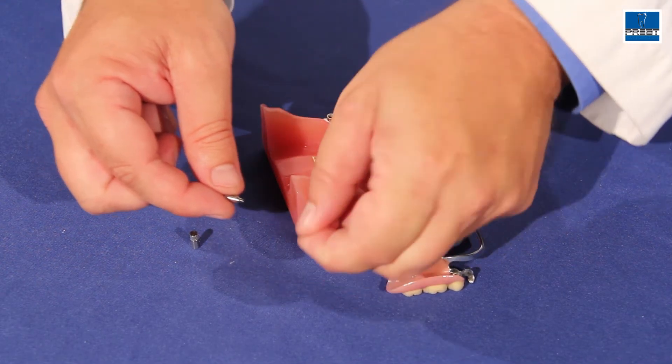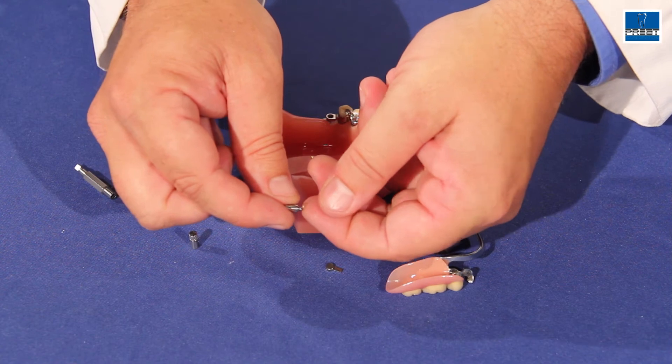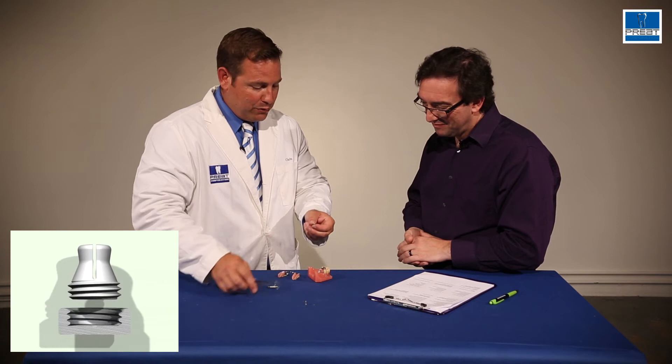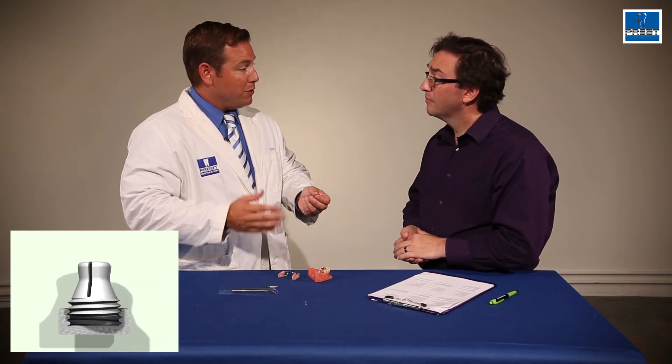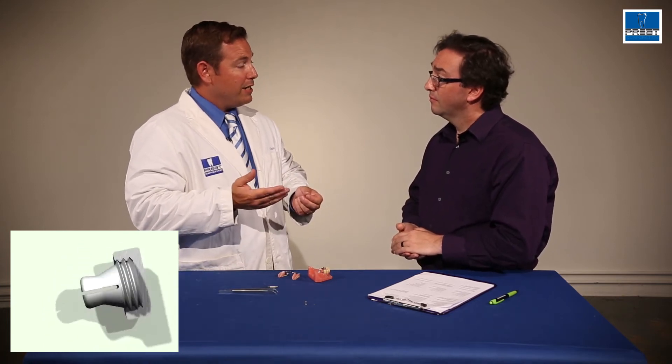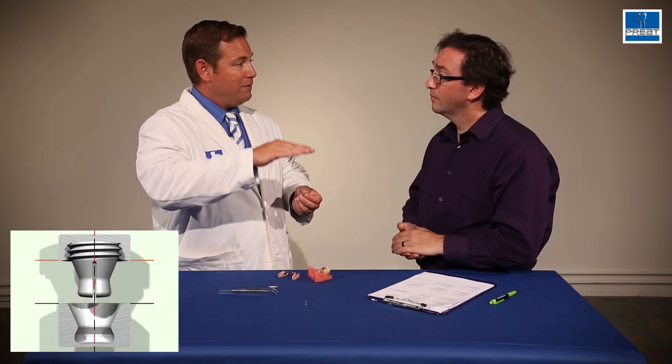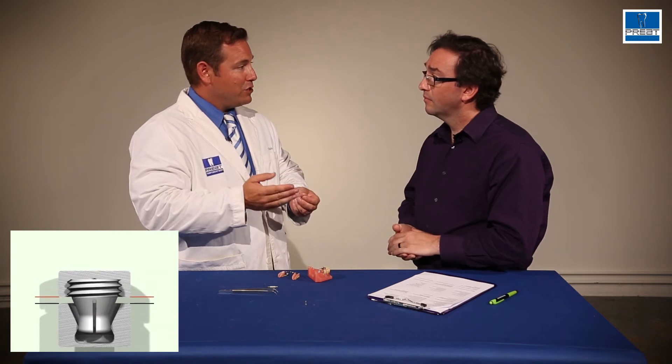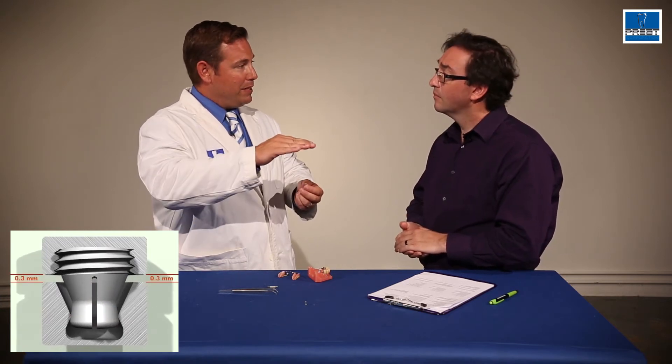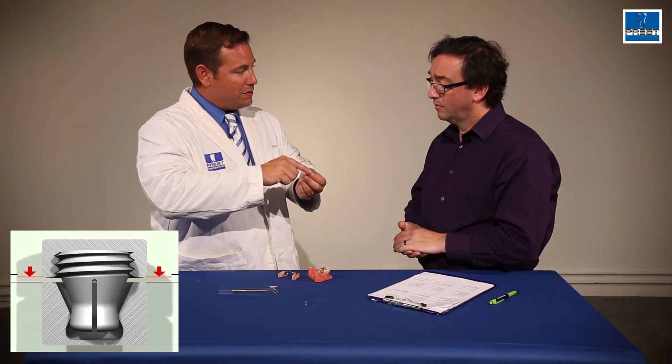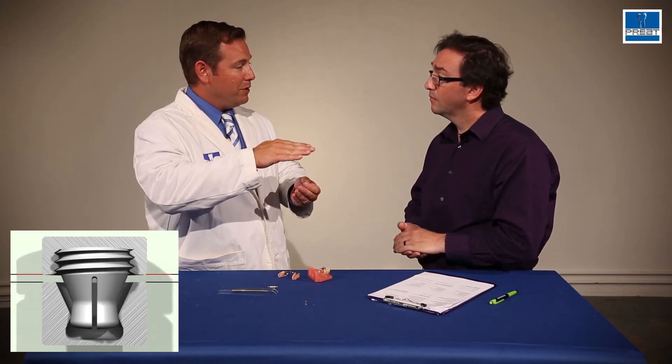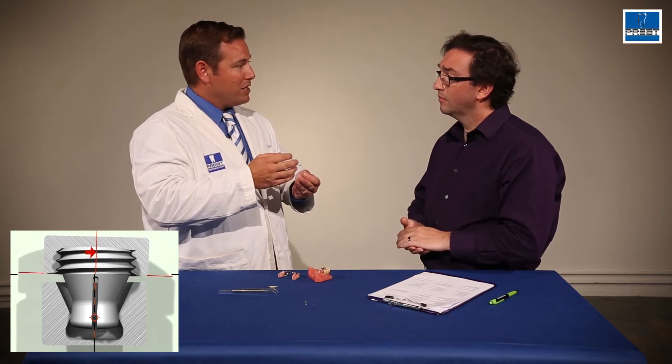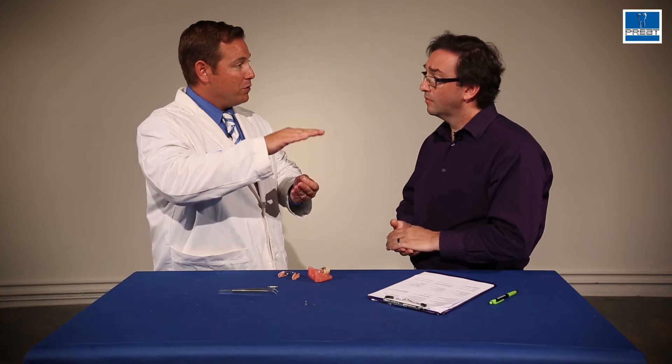The answer is that the space maintainer was not used. There's a little tiny brass space maintainer that comes with the impression coping. And what the space maintainer is used for is it's used during impression taking. It's used during indirect and direct processing. It elevates the male to keep it in a more retentive position. There's a concave convex relationship between the male and female. This elevates the male, and also with the thickness of the spacer, three-tenths of a millimeter, you're allowing the patient to function, to chew, to swallow without having the attachment mushroom out inside the female. It's allowing that vertical movement.